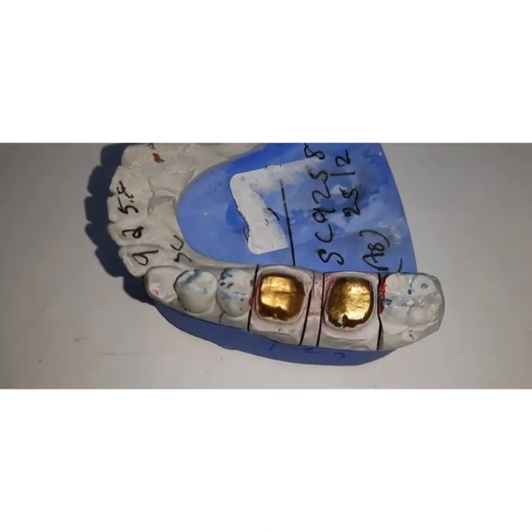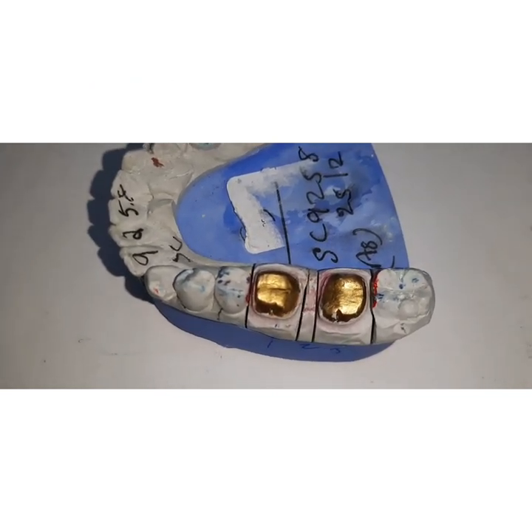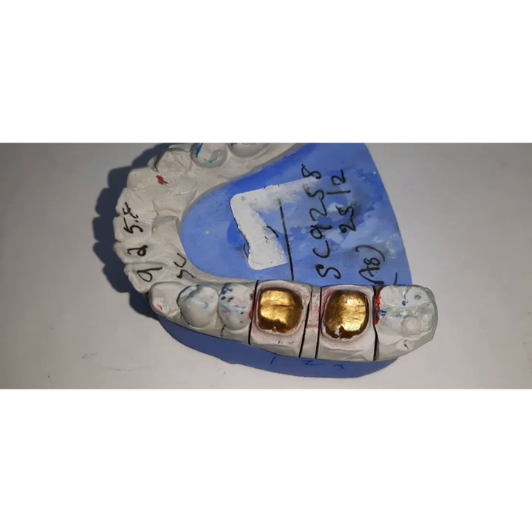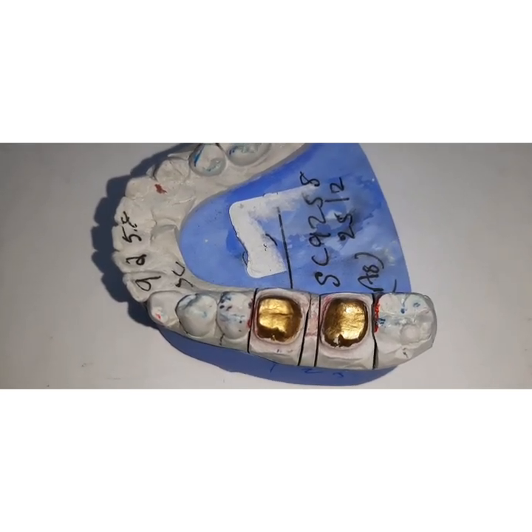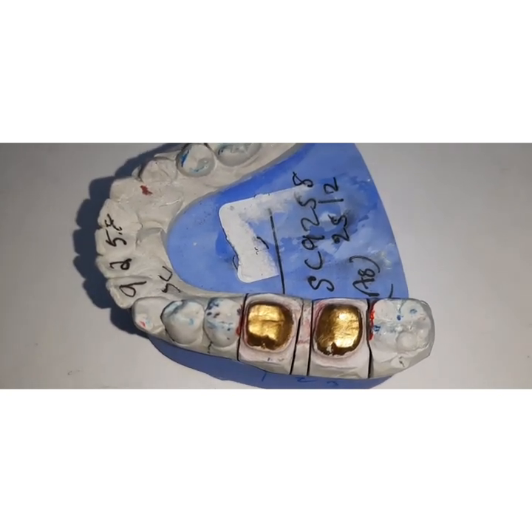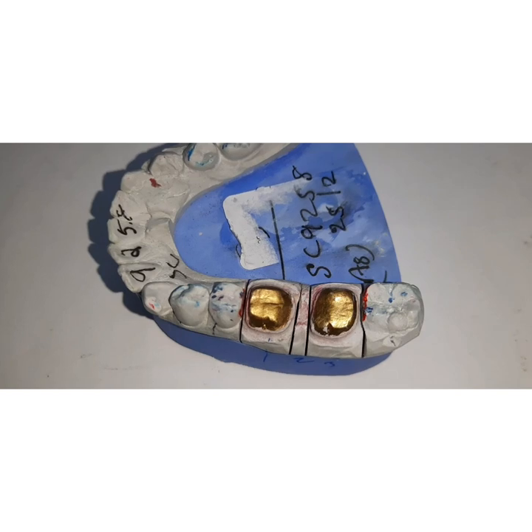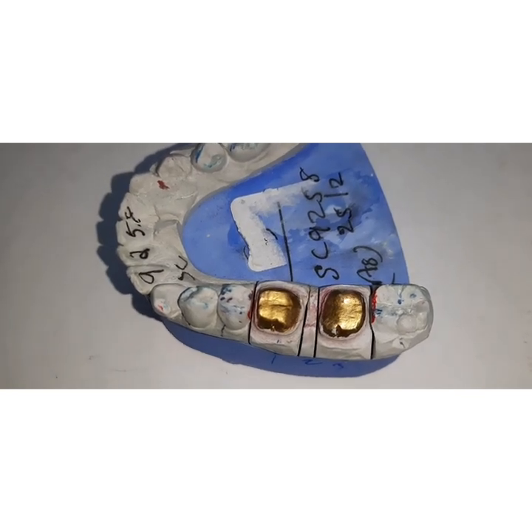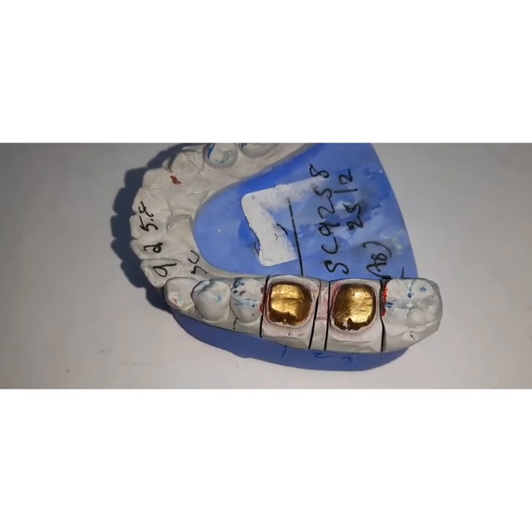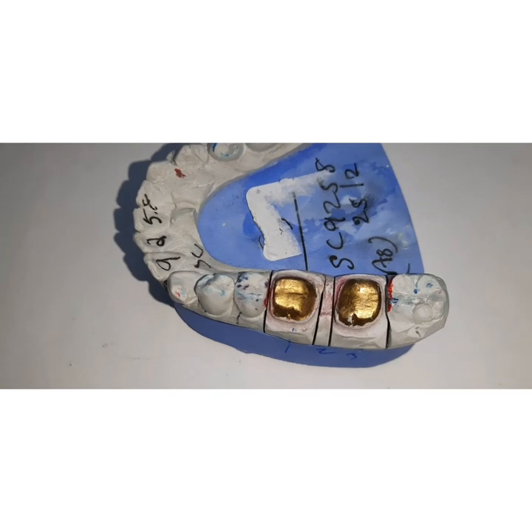The classification of dies commonly used in dentistry: based on the type of material, they are gypsum products — the most commonly used being type 4 dental stone, and type 5 can also be used. Then you have metals — these can be electroform dies, sprayed metal, or even amalgam. You also have polymers, including epoxy resins and polyurethanes. Divestment material can be used for direct baking of porcelain crowns, or refractory dies for wax patterns. Cements such as silicophosphate cement can also be used as dies.